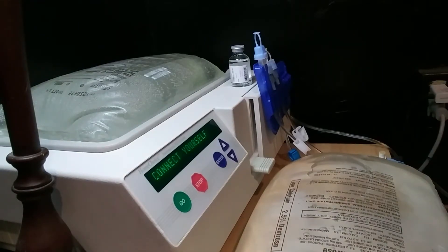This is going to be a lot shorter video than setting up the cycler. I have the cycler all set up now.